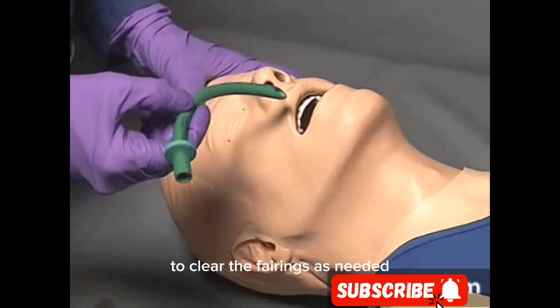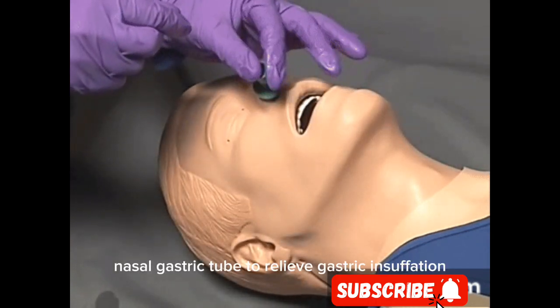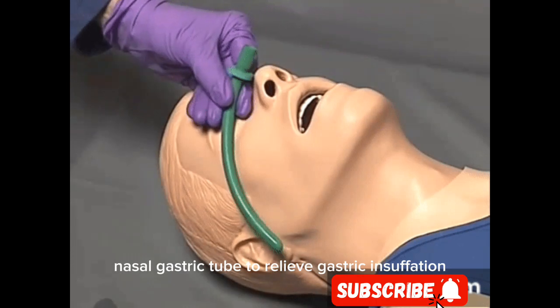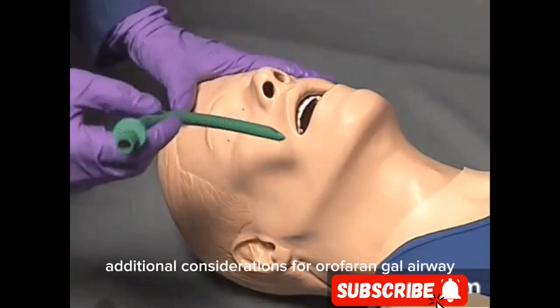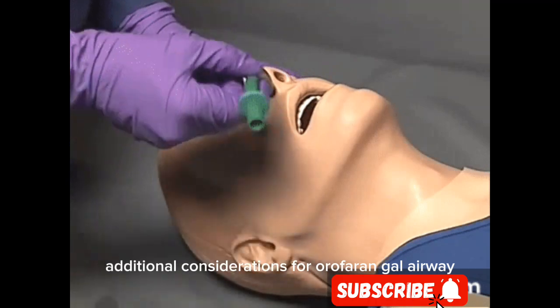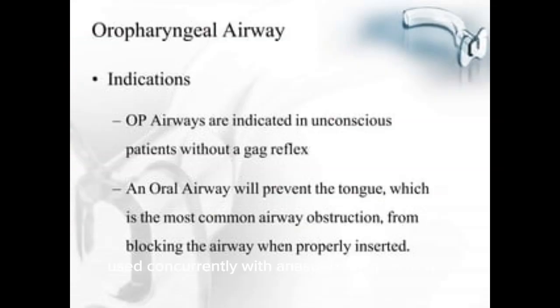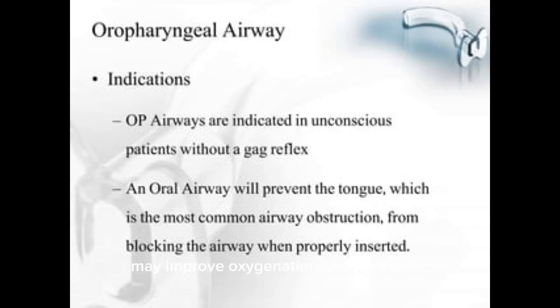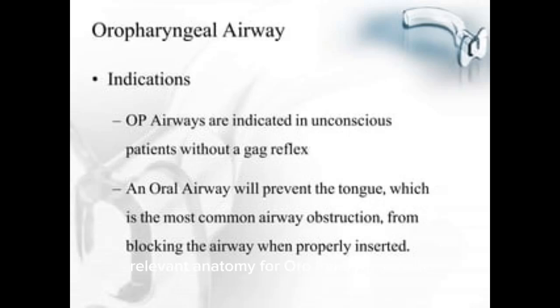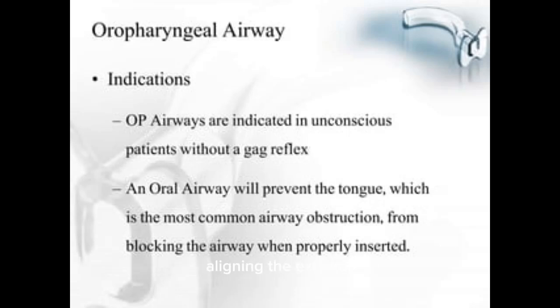McGill forceps if needed to remove easily accessible foreign bodies to clear the pharynx; nasogastric tube to relieve gastric insufflation as needed. Additional considerations: an oropharyngeal airway used concurrently with a nasopharyngeal airway may improve oxygenation and ventilation.